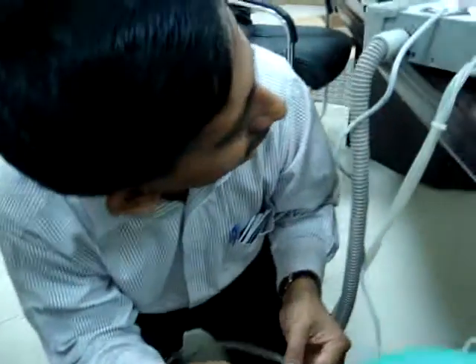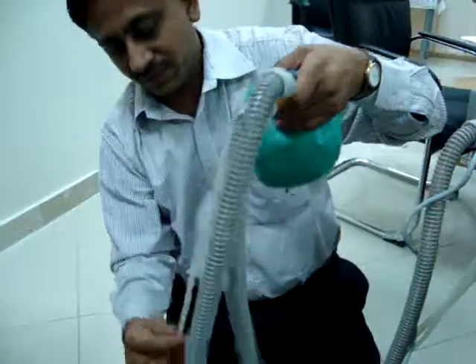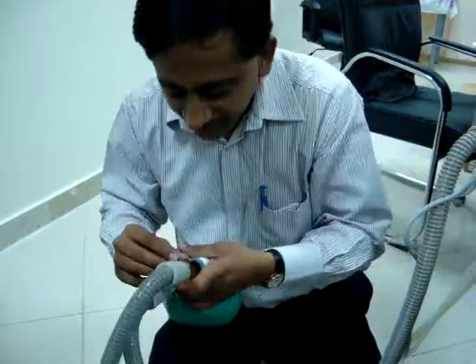My question is, why is this high pressure and this one low? What is this? This is called the differential flow transducer. This is for the feedback. This portion is measuring the flow.